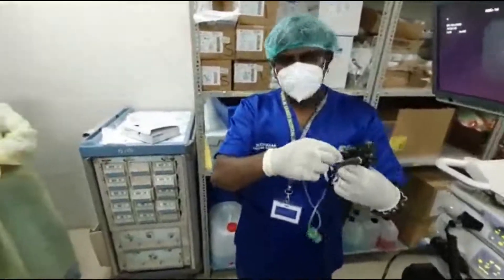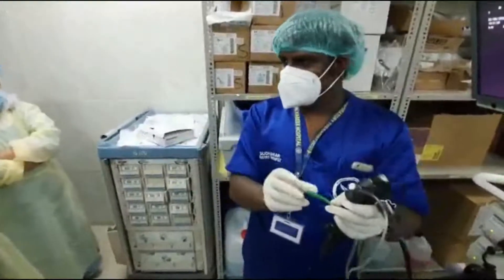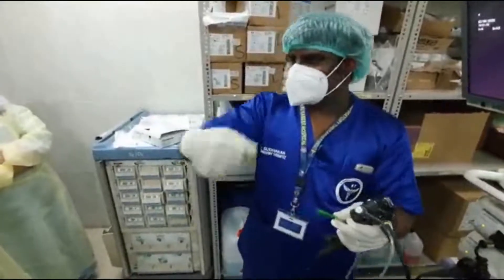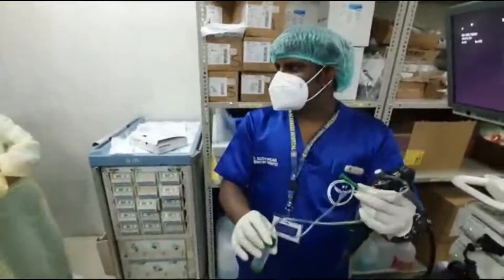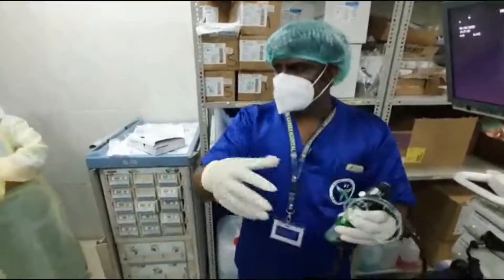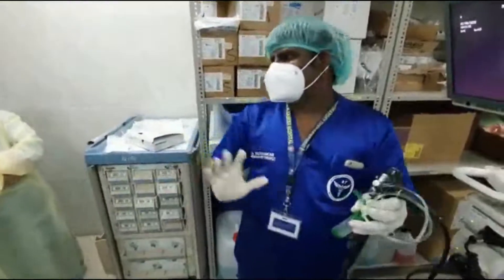This end connects here — completely connected. On the other end, cut one suction catheter size 14 or similar, connect it near the suction end, then connect that to the suction and you can start. For BAL cultures, if you want a second sample, just remove the bottle from here and change the bottle only — no need to throw the rest.